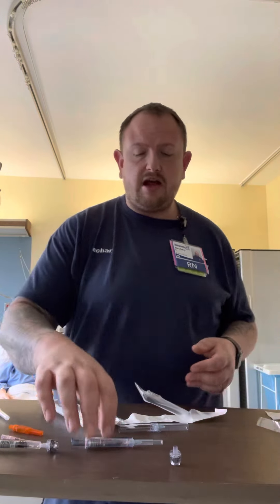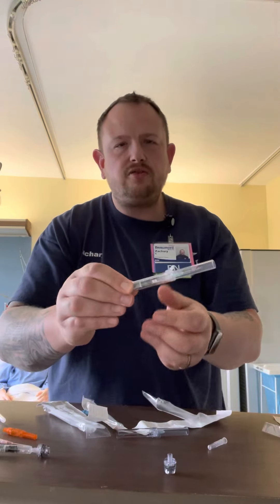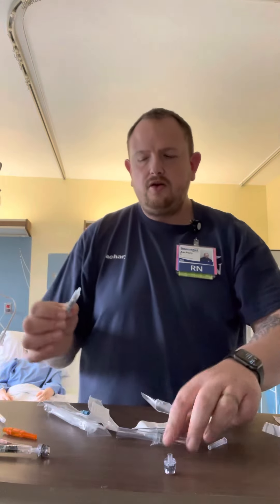A couple of things you could actually draw. Now if you grab the product as is and you want to use the needle, you could technically poke in and draw back the blood that you needed. So in that example: I have my vein, I palpate it, I poke, I get the blood. You'll notice on the very top there's a small hump — if I just press that down and in, it actually activates a safety and clicks. Once I do that, I'm safe to disengage with a twist and a pull.